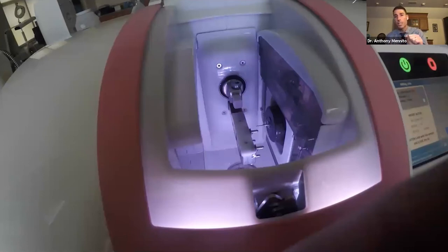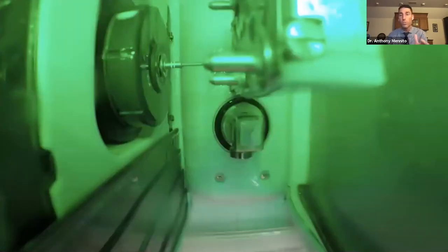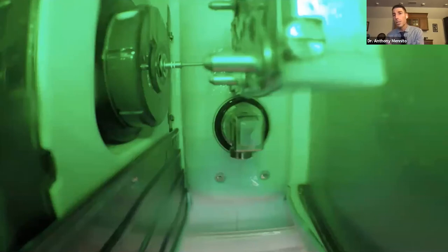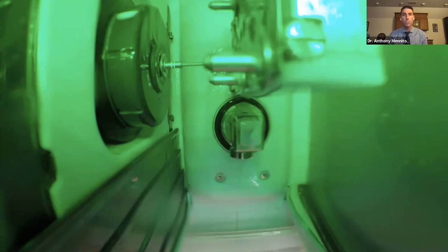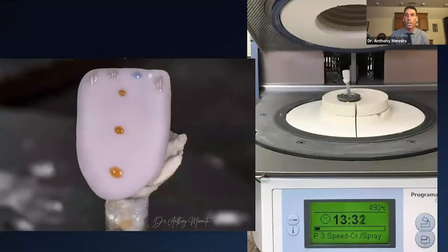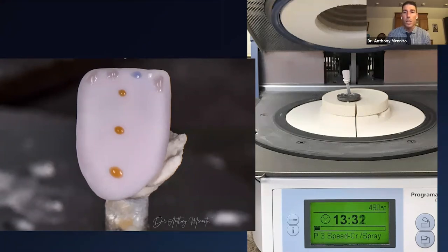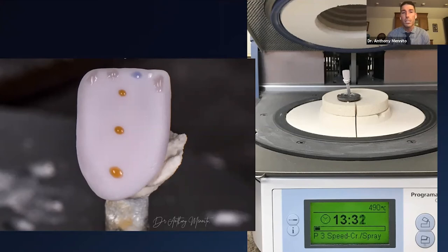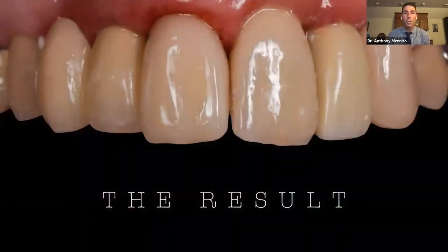Once that design is done, the 30S mill will mill out a crown anywhere from eight to fifteen minutes. Pre-molars have been right about eight minutes; it takes a little bit longer for a molar, and a little longer for anteriors because of their length — maybe 12 to 13 minutes. Eight to 13 minutes is right in the wheelhouse of what you can expect for a milled Emax restoration. Once we get it out, I like to put a little stain and glaze on to help them match. This is the beginning of my staining and glazing for this case. The oven cycle on the CS2 for Emax — the spray glaze cycle — is about 14 and a half minutes.